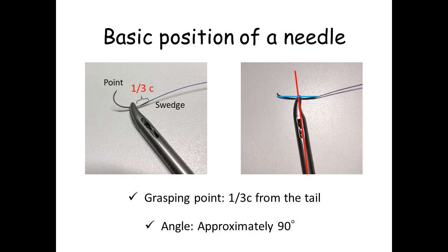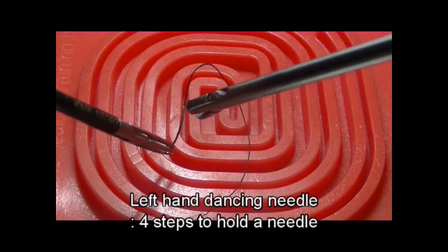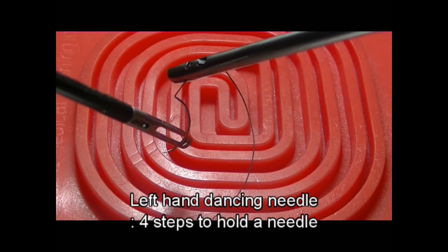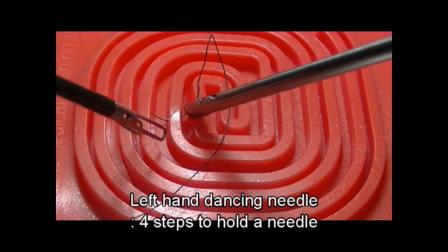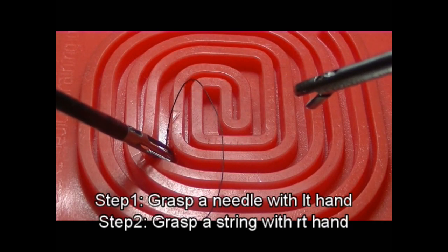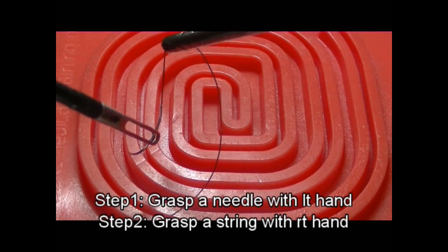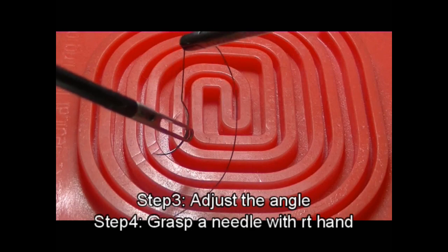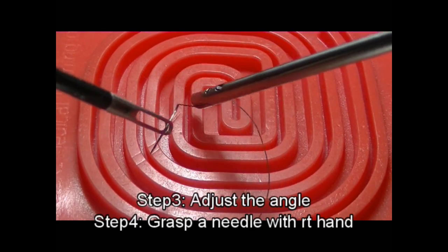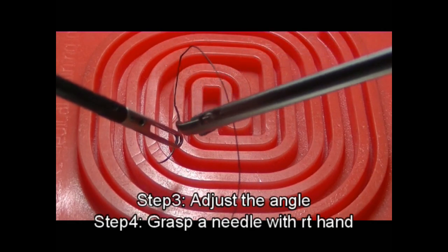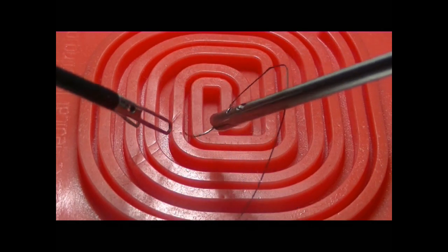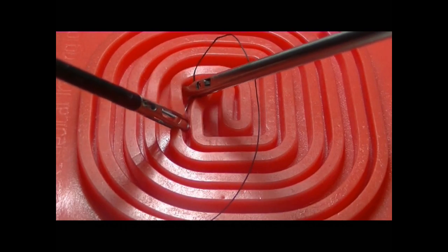I'll show the basic skills of handling a needle. This is the left hand dancing needle. I think this is the most essential technique of needle handling. First, you should grasp a needle with your left hand, then grasp the string with your right hand and rotate the needle. When you decide the position of the needle, grasp it with your right hand. With this technique, you can handle the needle easily.